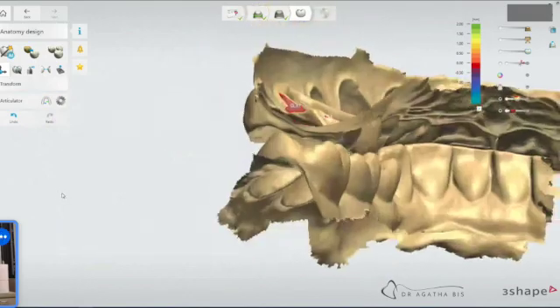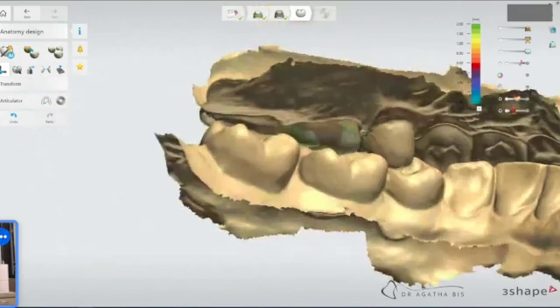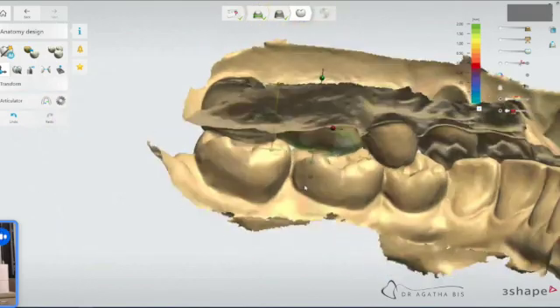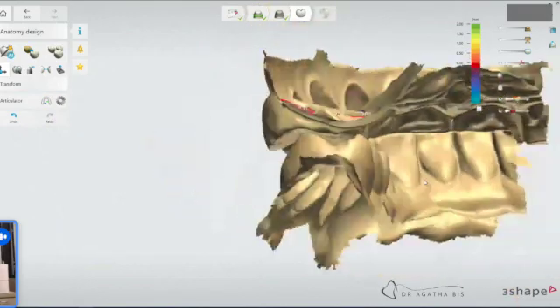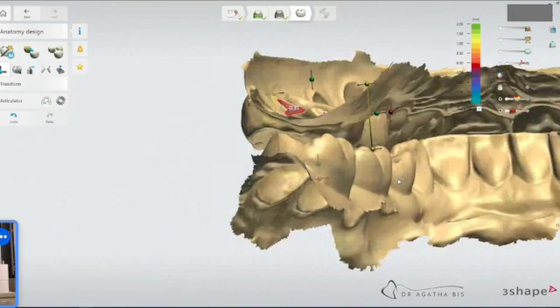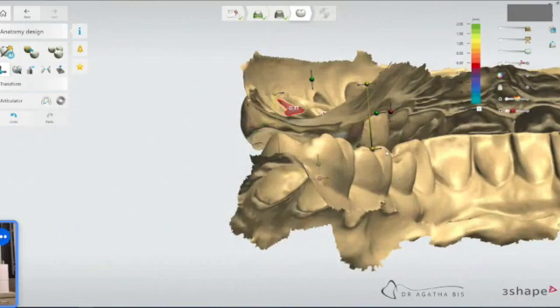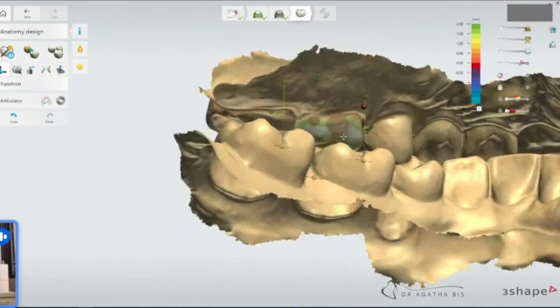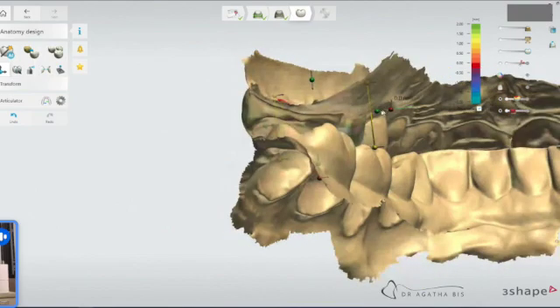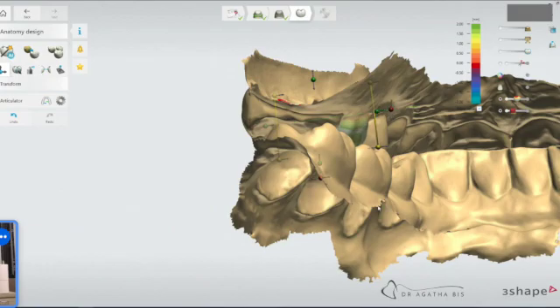And now let's see how that looks. Then I'll just always check it from the lingual as well. This one maybe I might bring it out a tiny bit. It's a little thin there. It's showing you that it's thin. So definitely want to bring it out a little bit to get a little bit of thicker material.